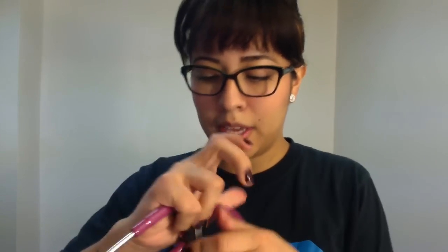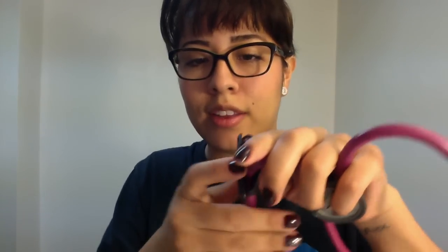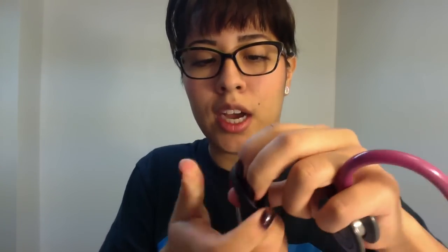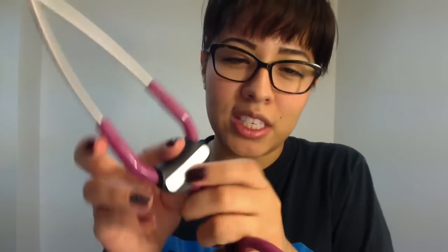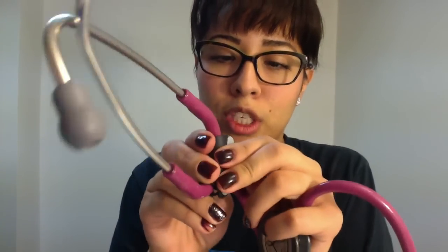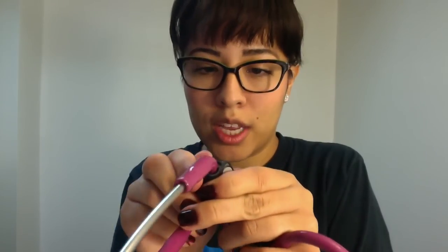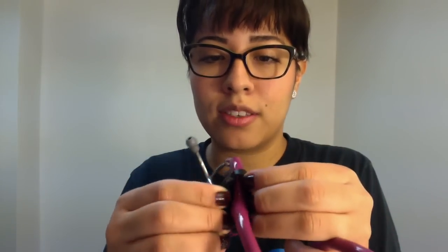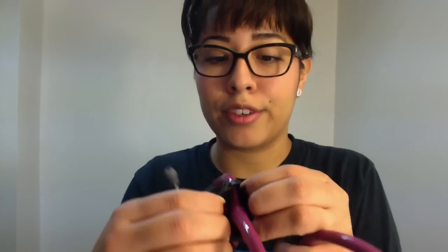Don't forget to clean behind this piece as well. One negative thing is that once you put it in, I don't think you can take it out unless you break it. So cleaning under this area can be a little hard because once these pieces are in, there's no way out unless you rip it. That can be a challenge.